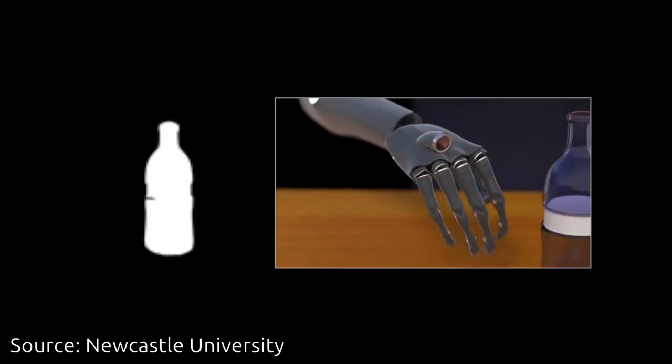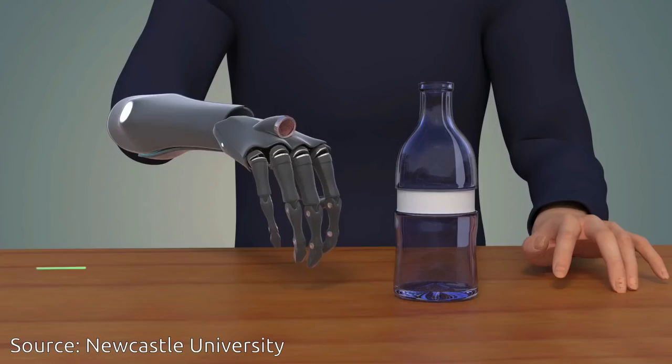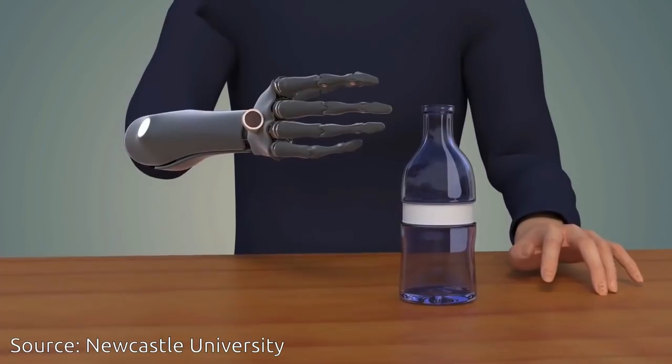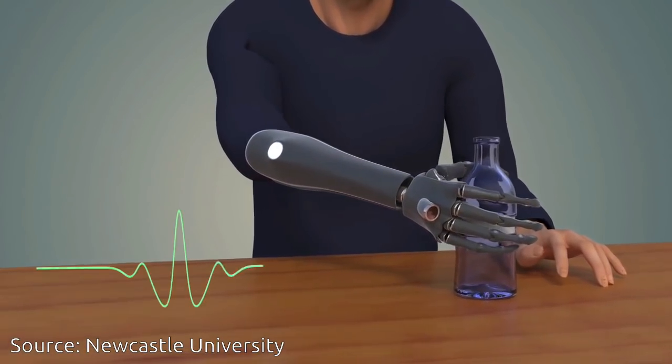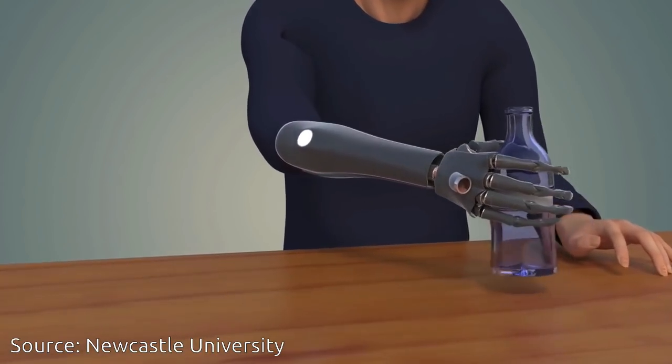A small number of amputees have already trialed the new technology, and now the Newcastle University team are working to offer the hands with eyes to patients at Newcastle's Freeman Hospital.